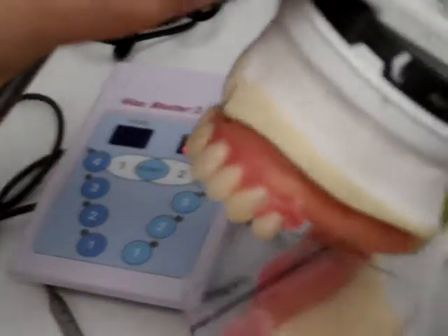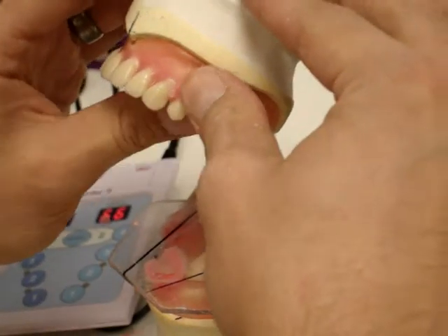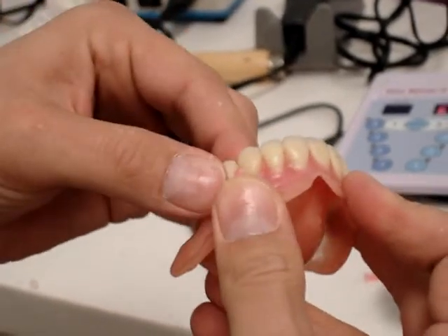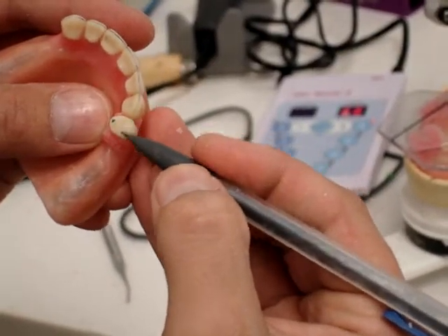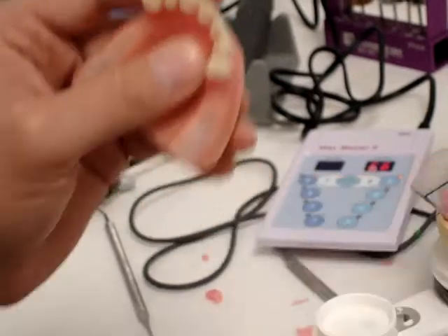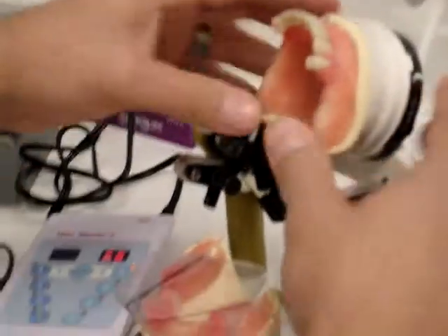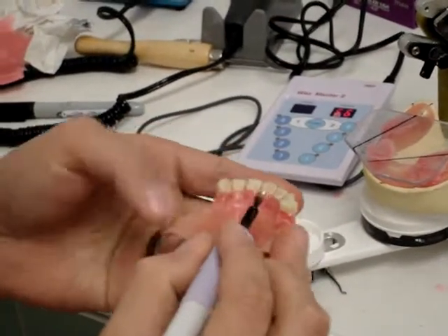I want to basically get it about where I want it. For the first premolars, both cusp tips touch the occlusal table, so I know it has to be about in line with the canine. I can also mark the cusp ridge so you can see a nice flow of those incisal edges and lines. I'm going to seat this down because I want it to sort of stay put — the wax is starting to cool down and I don't want it to fall off.